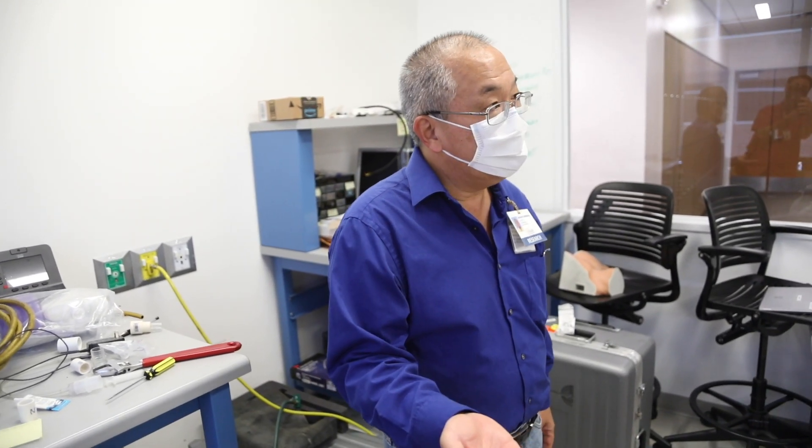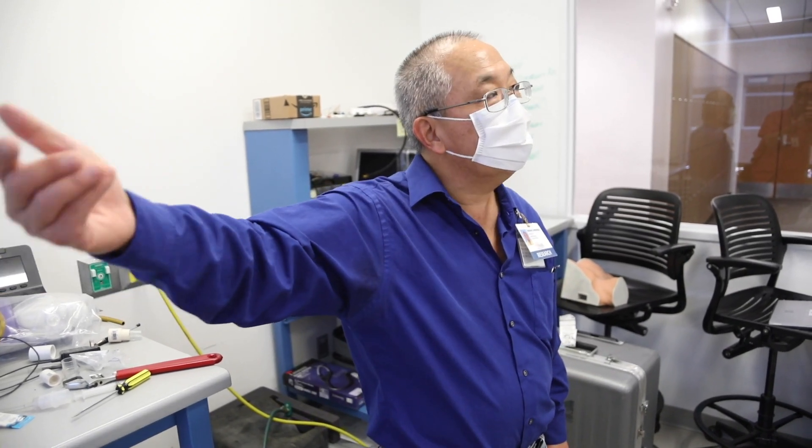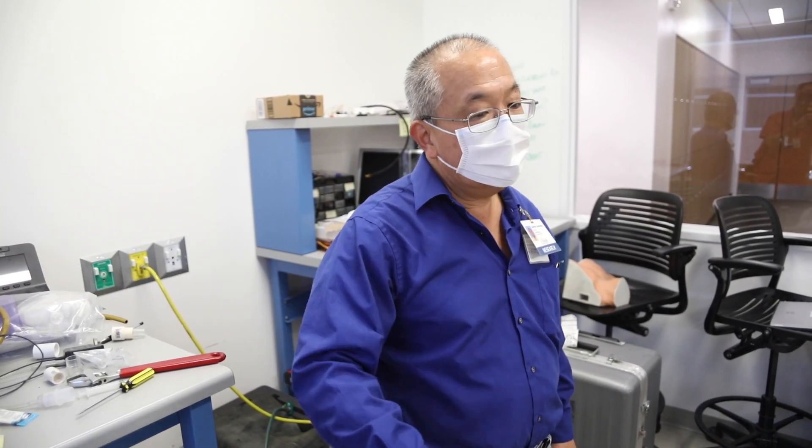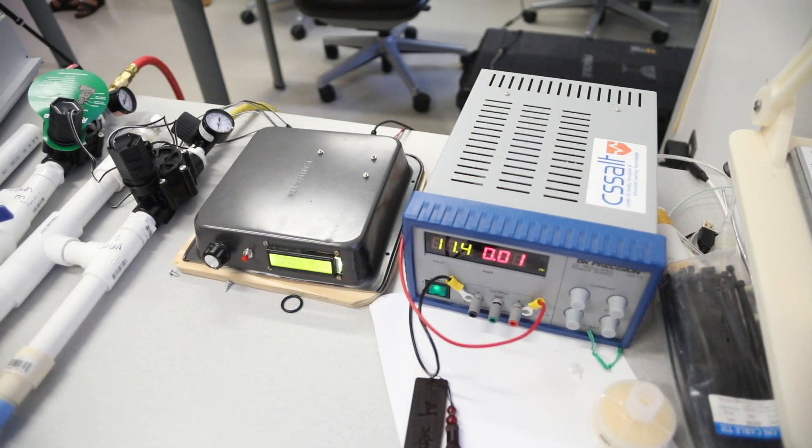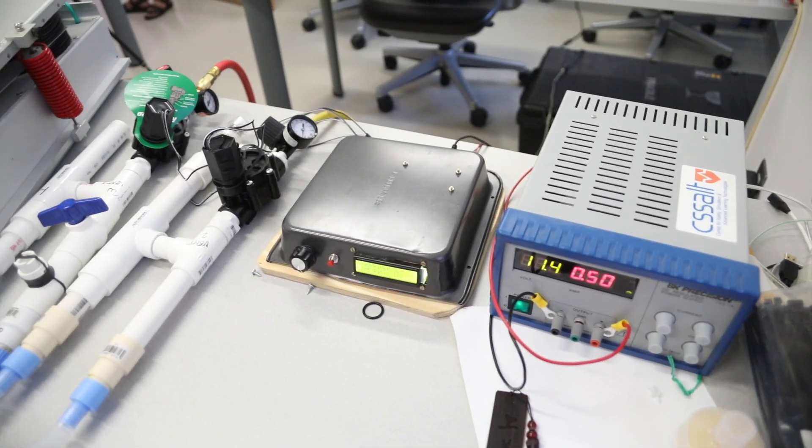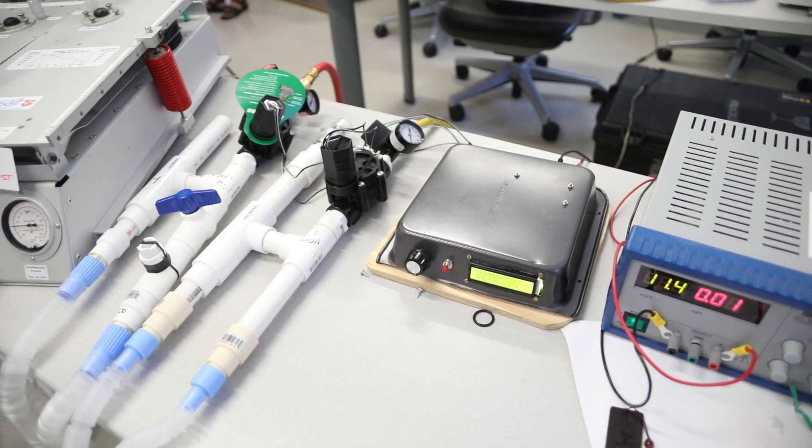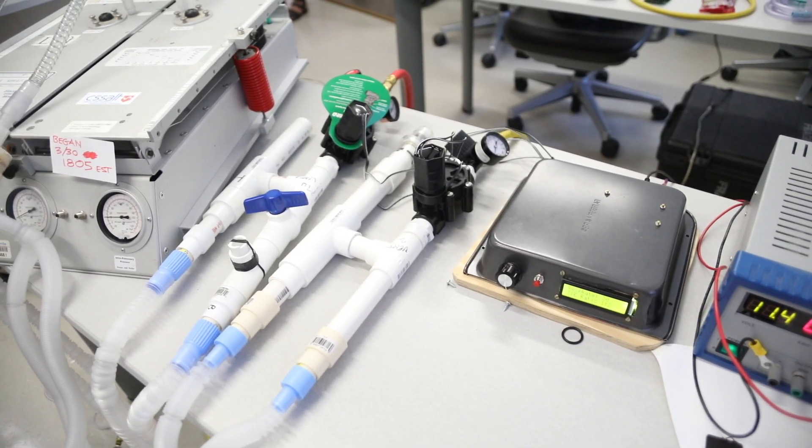So you probably have heard of machine learning. I'm discussing with a colleague who does machine learning. So then the idea is we will train a neural network to do the simple tasks that a respiratory therapist would do.